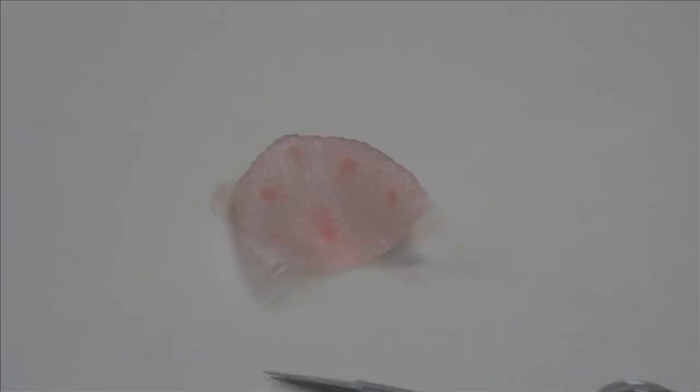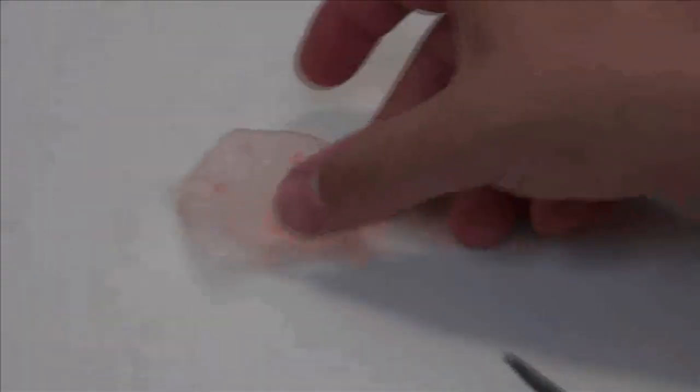The mesh framework can now be trimmed to its final design using scissors or a carbide burr.